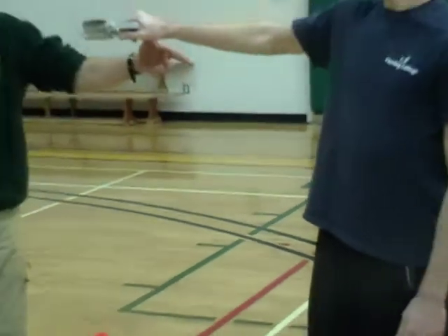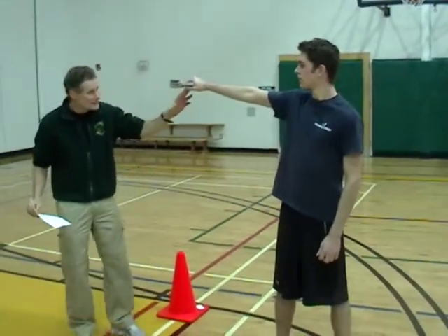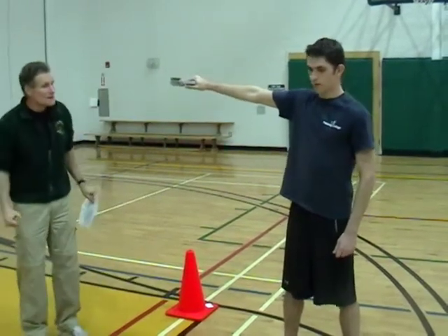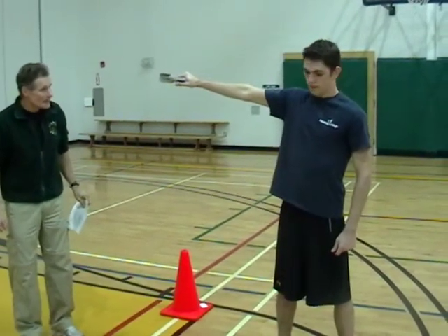In order to do the test, we put it out to the side. We keep it in the fingertips as best we can. You squeeze as hard as you can, bring it down in front, and just don't touch your body with it. All right, go ahead.